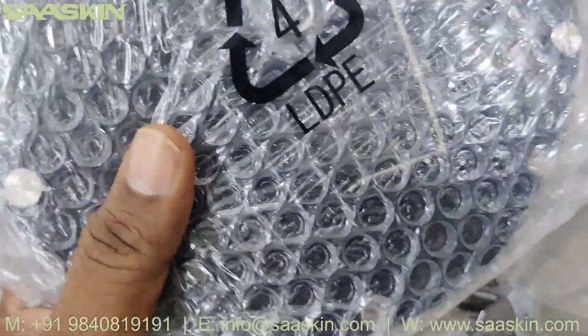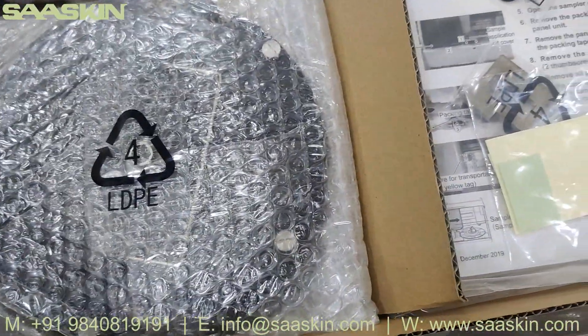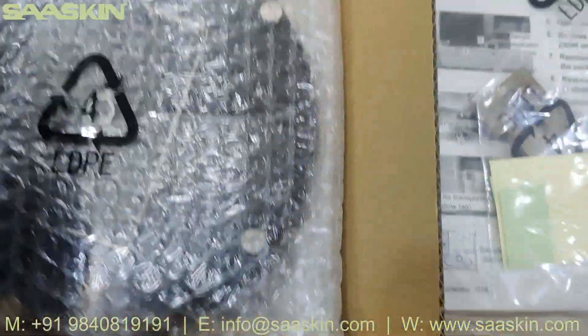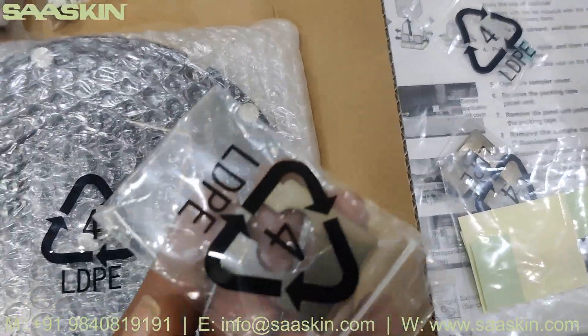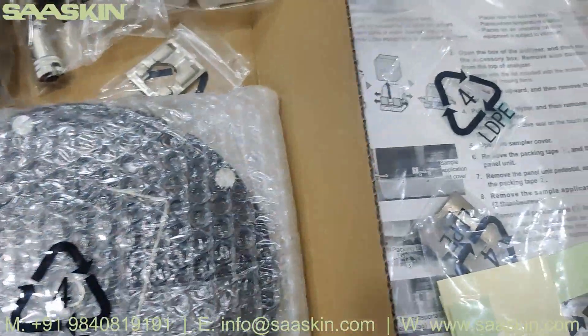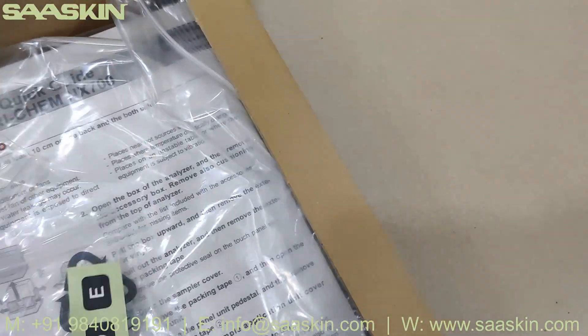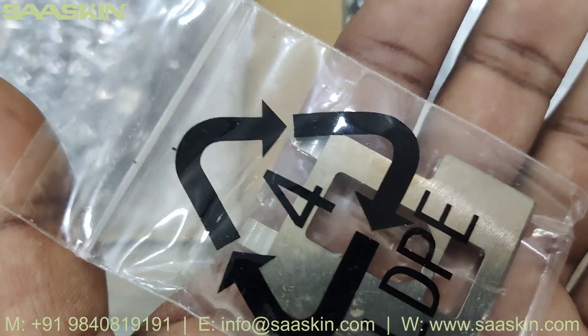Then there's an incubator — let's keep it here. And there's a slide transfer weight — this is called slide transfer weight. Putting it back. Then there's a slide cartridge label — an ABC label. You can see the ABC label here.